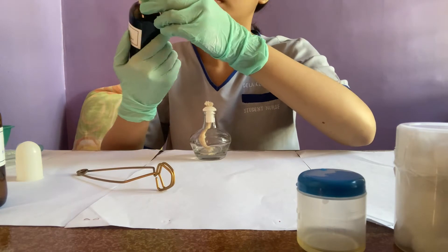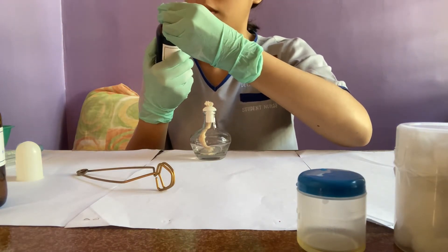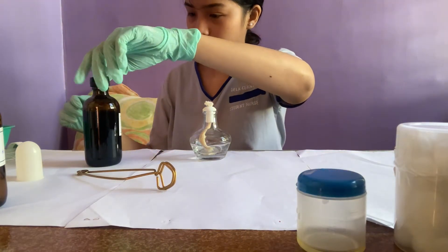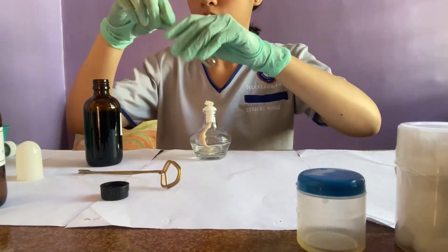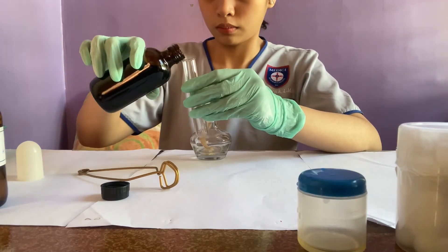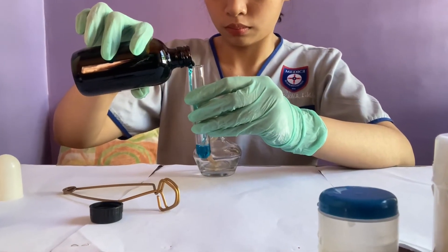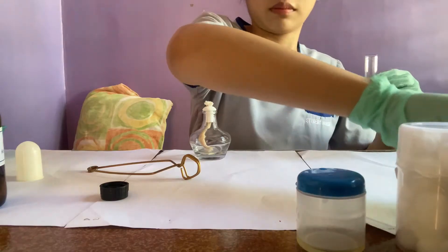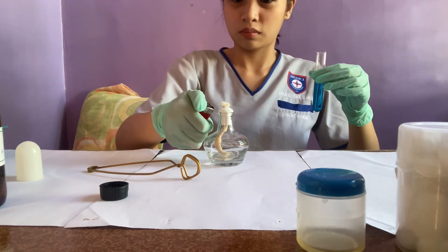So this is the Benedict's solution. This is the first reagent we're going to use for the sugar test in the urine. I'll just do a voice-over since I couldn't turn off my mic. What we're going to do is fill the test tube three-fourths with Benedict's solution, as our professor said.